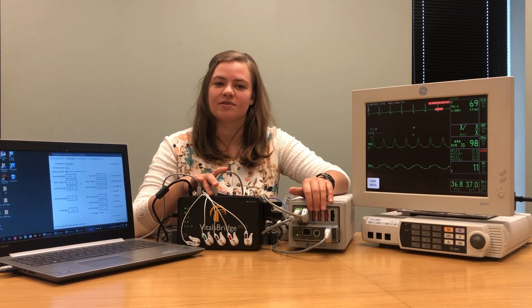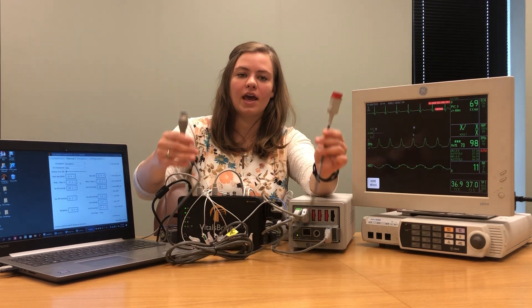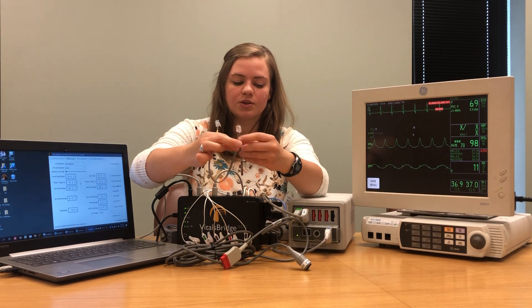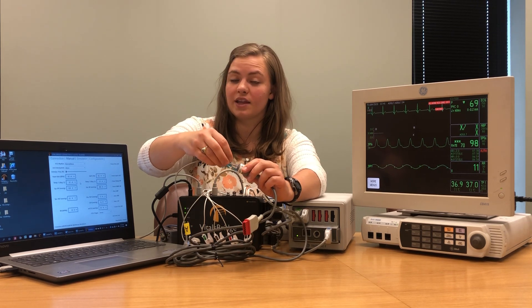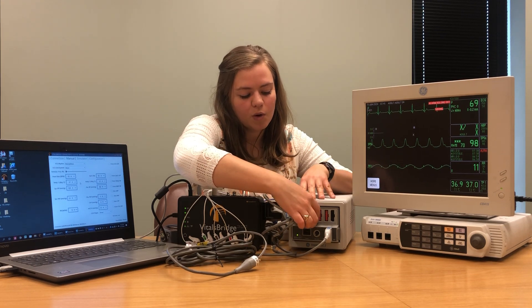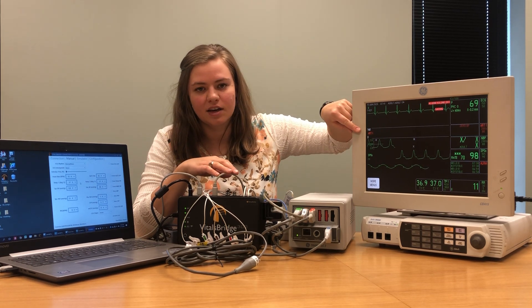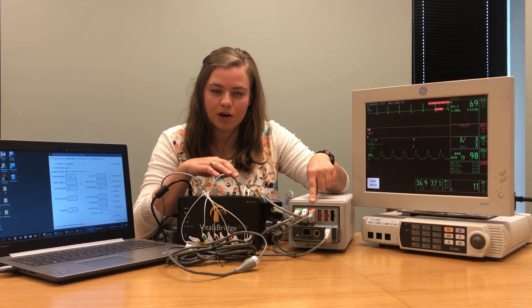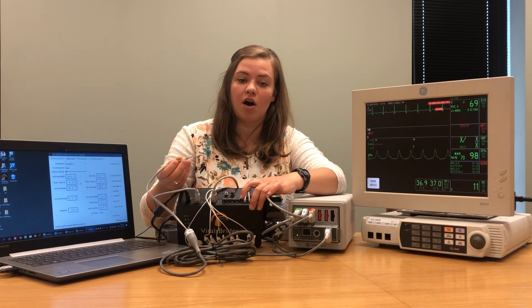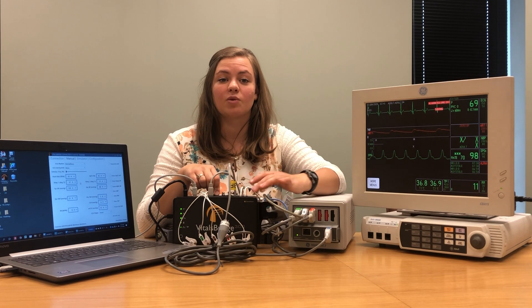The next thing we're going to connect is invasive blood pressures. The invasive blood pressure cord for your VitalsBridge should have one end that plugs into the patient monitor and another end that plugs into a small cord included with your VitalsBridge. Take that cord and connect it to the cable, then plug the other end into where it says BP on your patient monitor. When you plug it in you should see a label appear — this one says ART for arterial blood pressure, so we'll plug the other end into where it says ABP on our VitalsBridge. It's important that you connect the correct port to the correct port on your VitalsBridge.